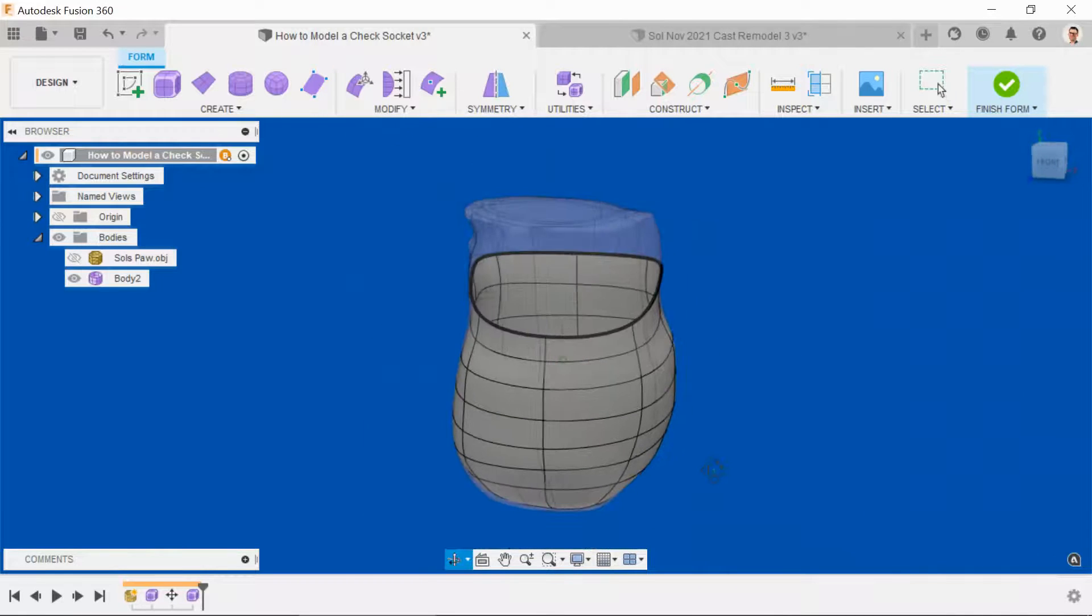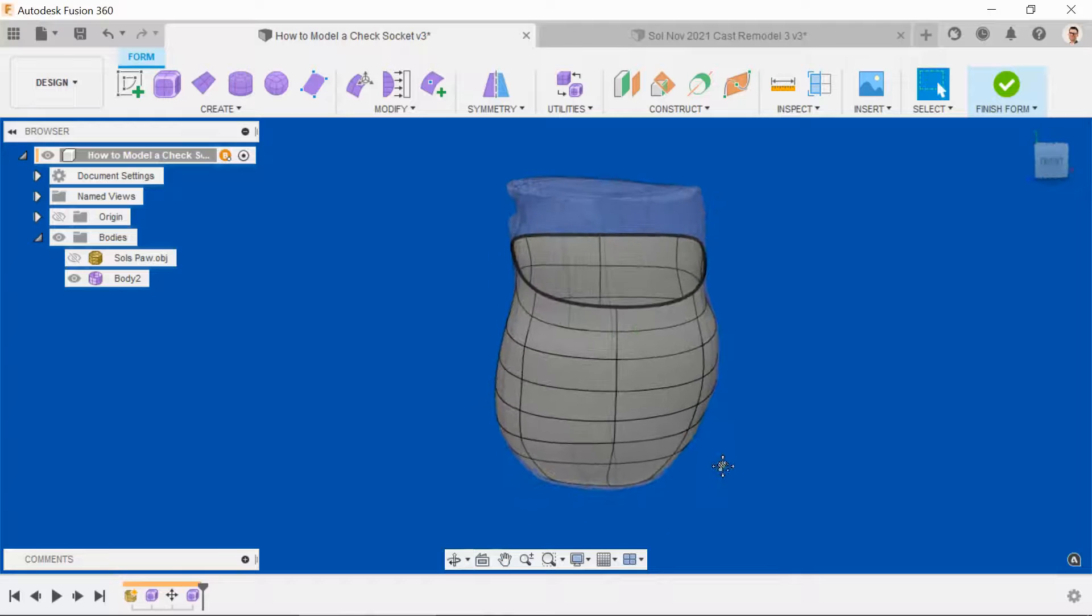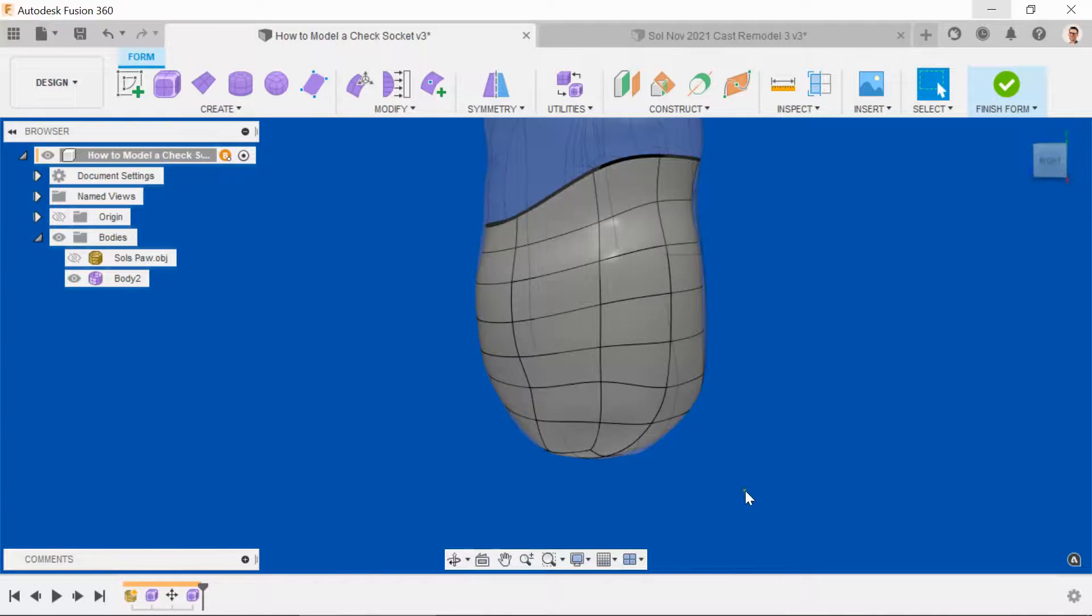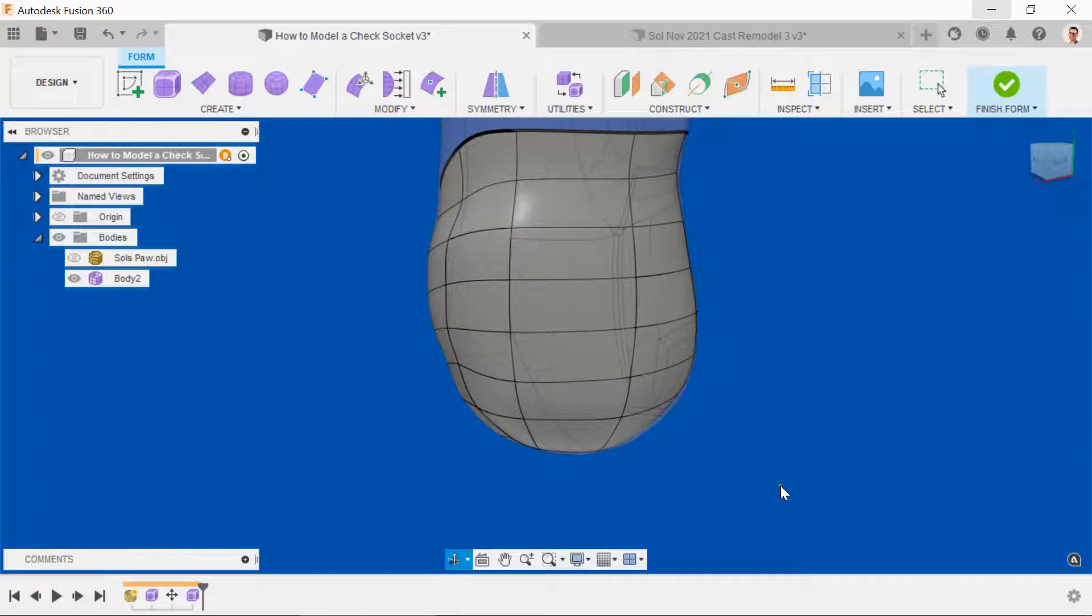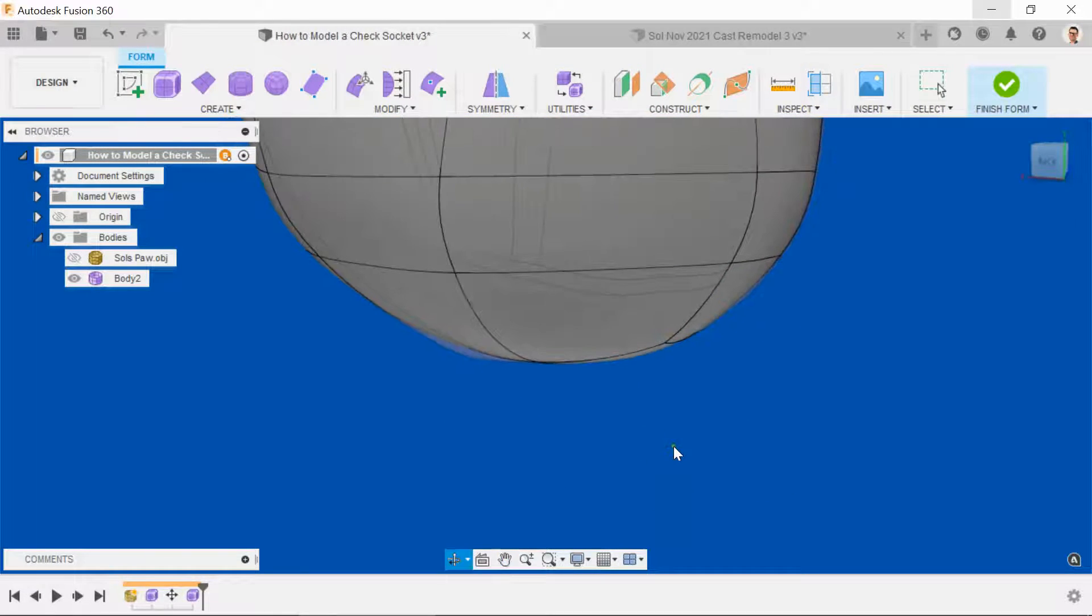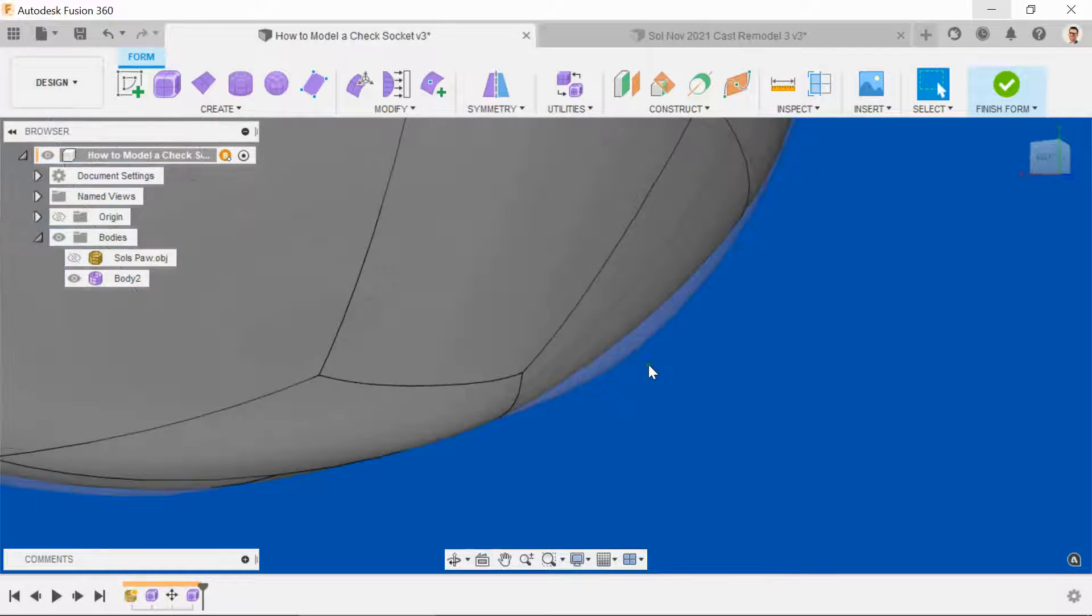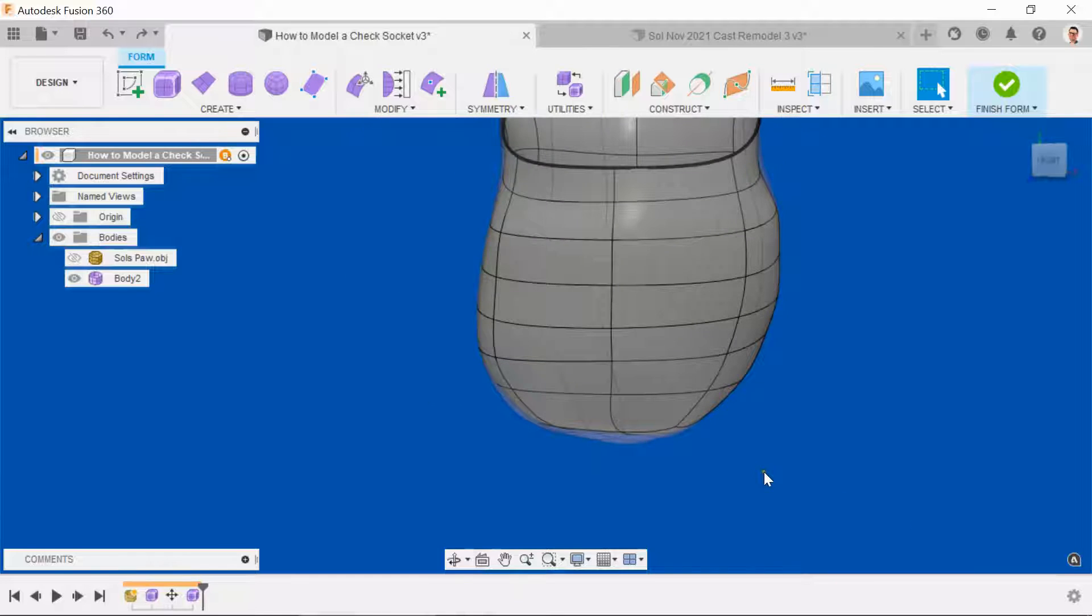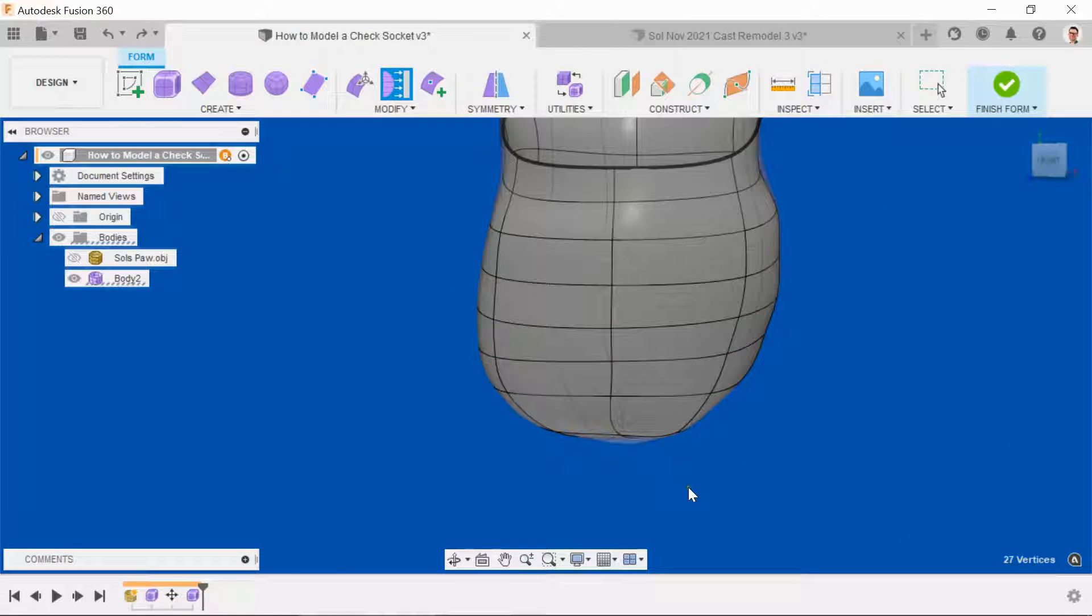The next step then is to check that there is no overlap between the T-spline and the geometry that we've just created. And what that means is visually inspecting from all angles to make sure that there are no areas of overlap. You'll see the overlap as a ghosting against the blue background. There are a few main ways that we address that. The first one is to just constantly keep pulling the geometry back to the T-spline and identifying the areas where it fell short.